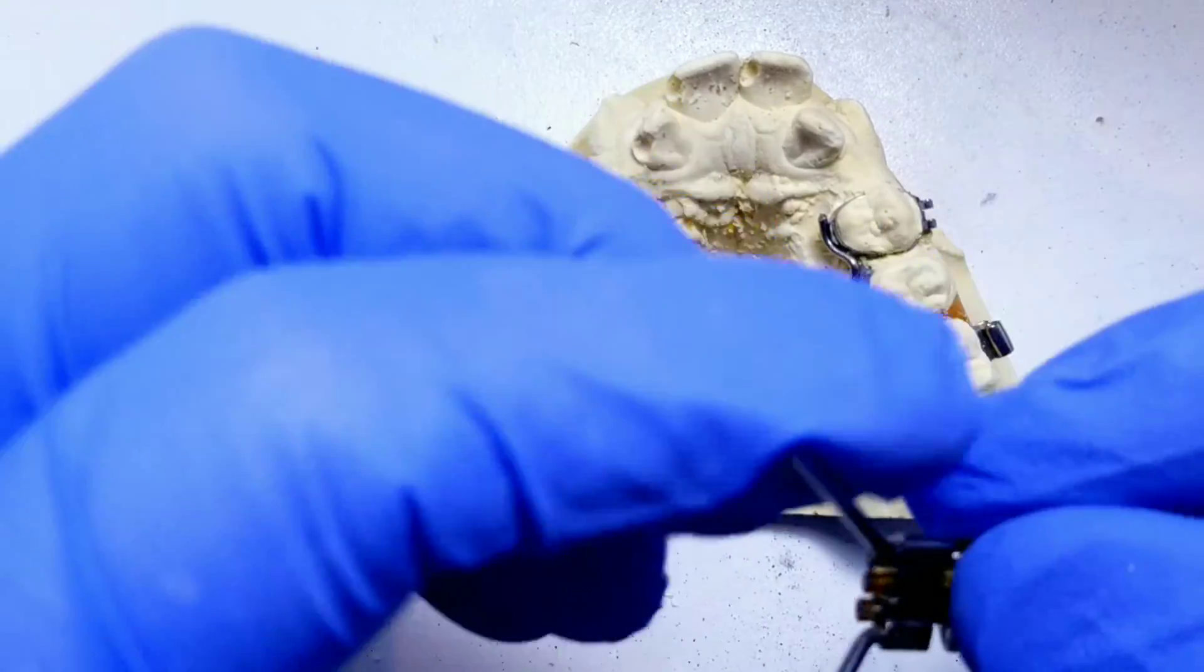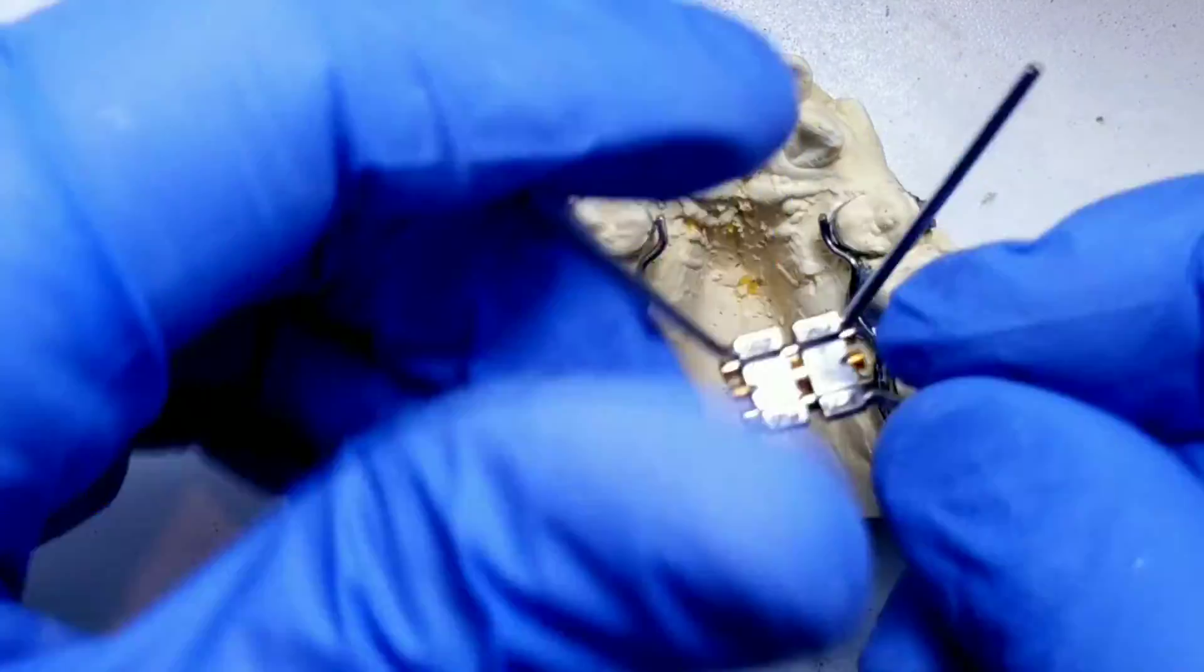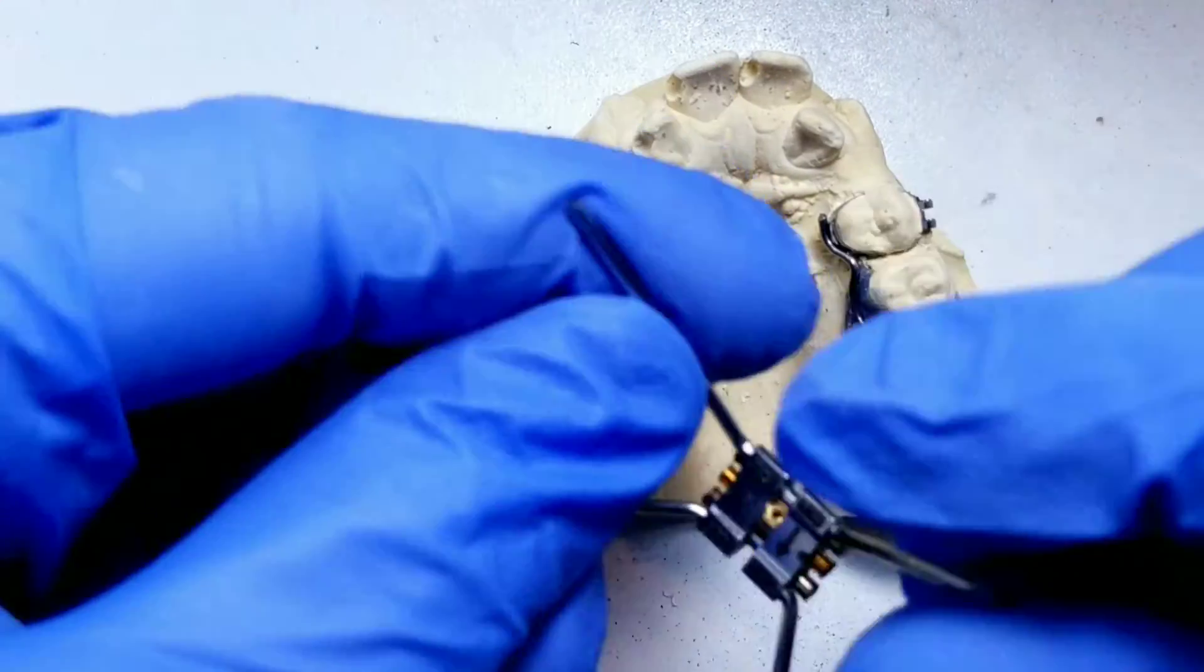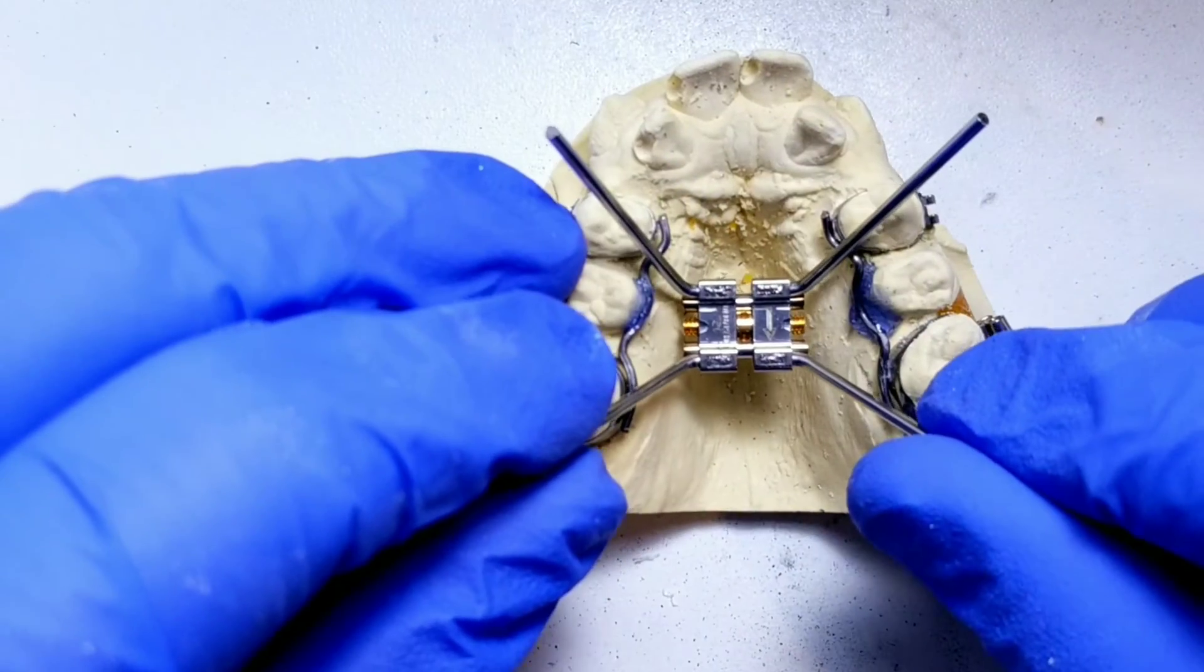Now that the expander is shortened, I can adjust it the way I need to make it fit into this little tiny narrow palate.